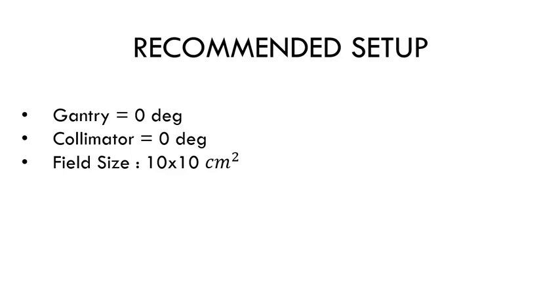The accepted tolerance is 2 millimeters. The recommended setup is gantry at 0 degrees, collimator at 0 degrees, and field size of 10 by 10.